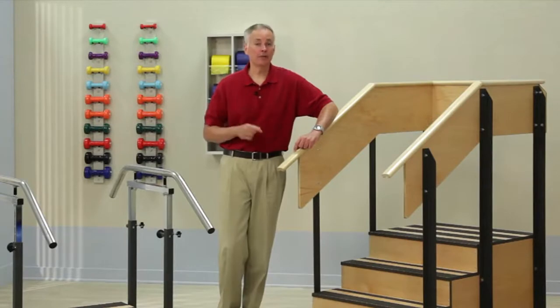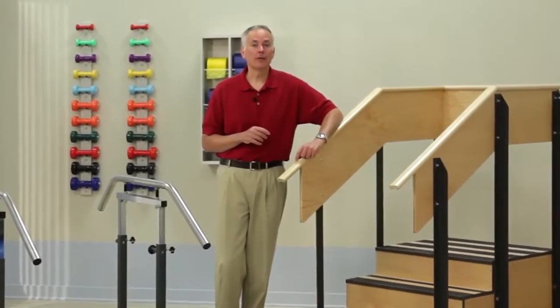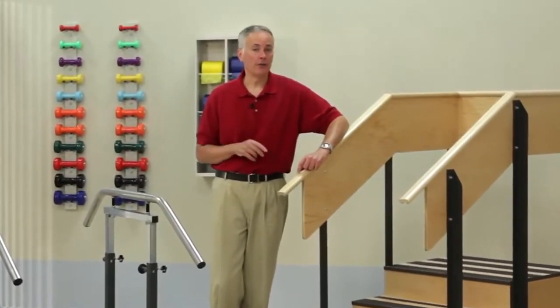Staircases have a long history of patient success in physical therapy, and Clinton has had a long history of success in meeting the needs of physical therapists who use staircases in their facilities.